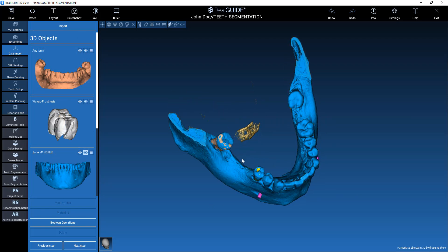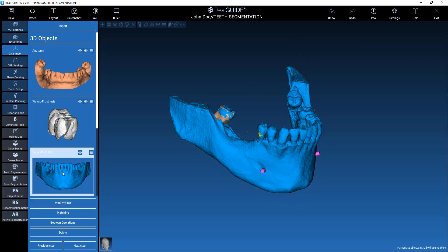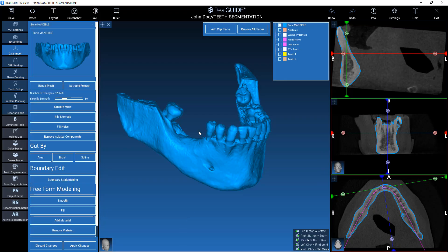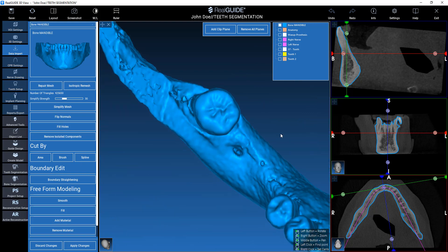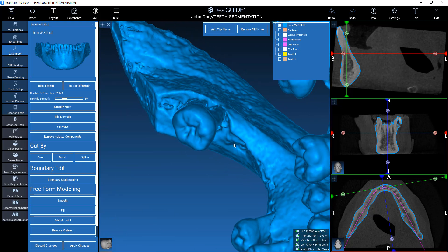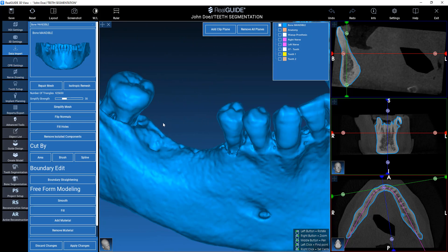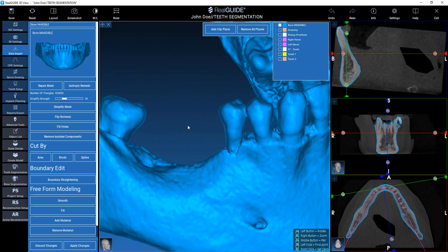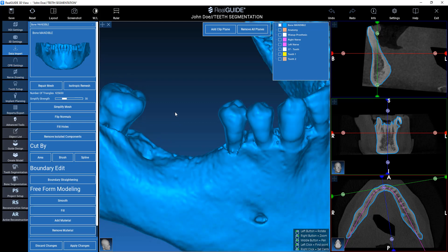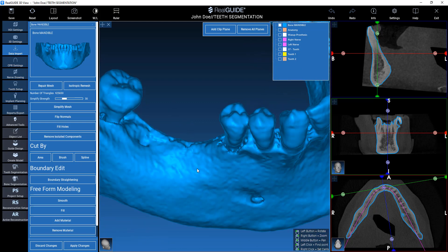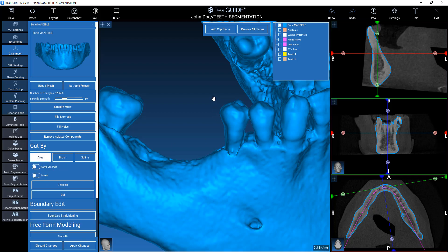Before performing teeth extraction, we will need to remove the existing crowns from the bone STL file. In order to do that, we select the bone file and click on Modify. We noticed that during segmentation we left quite a number of holes here, so if we think we will need to remove the teeth, it's much better to ensure that around the teeth we are leaving basically no holes, or at least close them as much as possible. What we can do now is cut the crowns roughly.